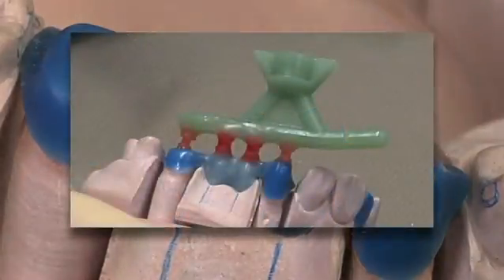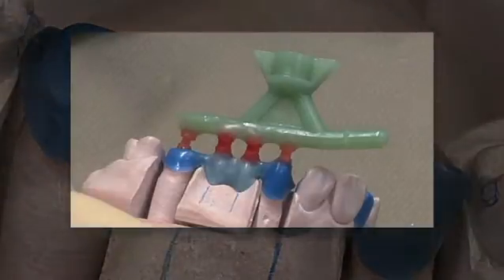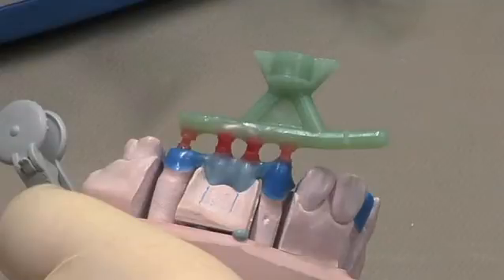The rule is: never join two parts of a wax pattern that would create a solid bridge until all of the sprueing is attached and cool. The concept is that the attachment sprues and the runner bar actually stabilize the pattern in the proper position.